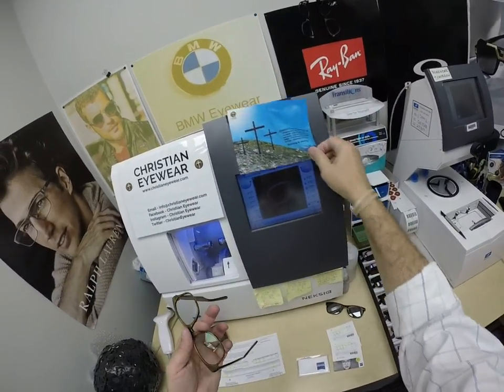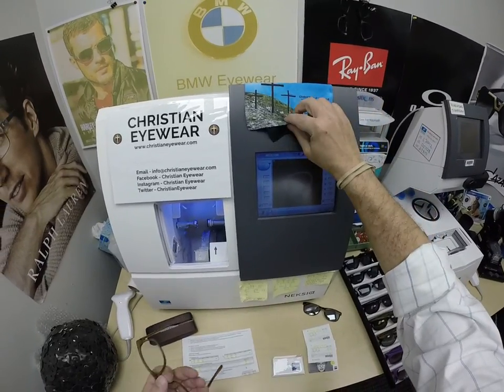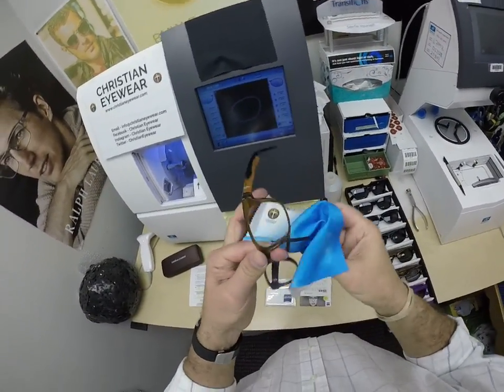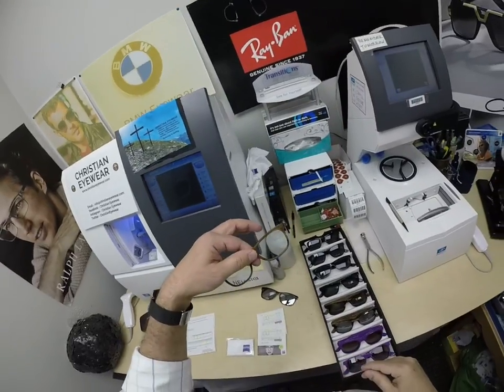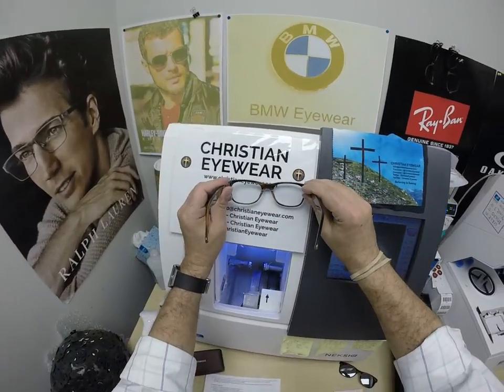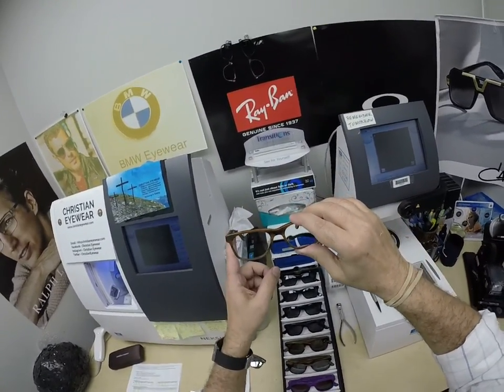So this is what they look like clear. I field test every cleaning cloth, Tammy, so when you get this in the mail and you see the wrinkles in there, you know that it works — I don't want to send you a dud. It's amazing how clear the photochromatic lenses are indoors now. Fifteen years ago that wasn't the case. And you're going to see how fast they turn now.